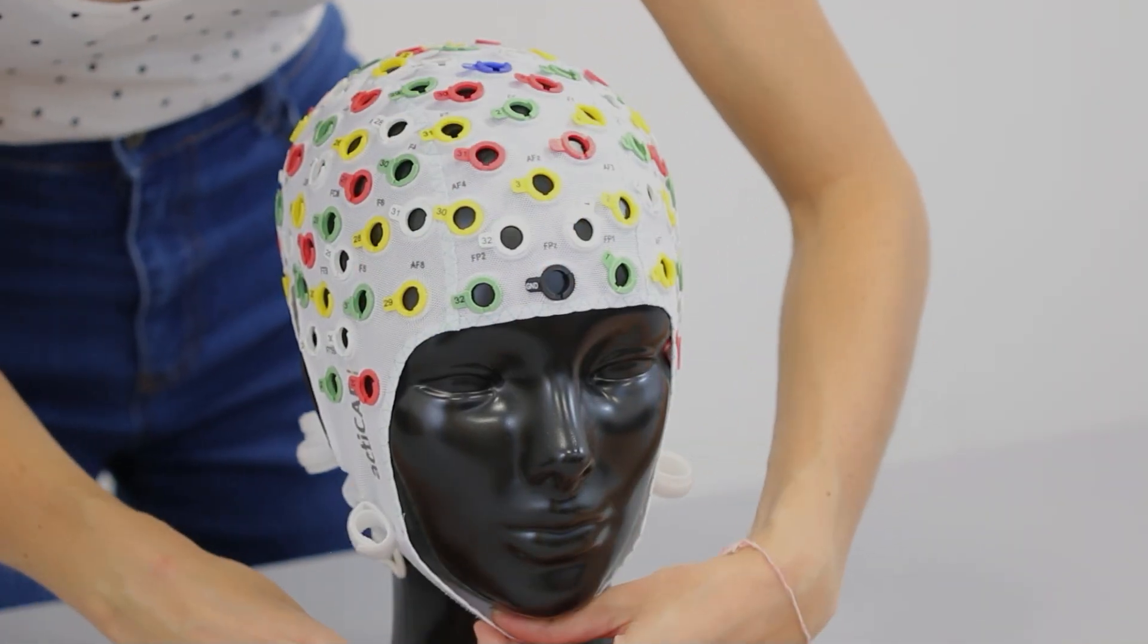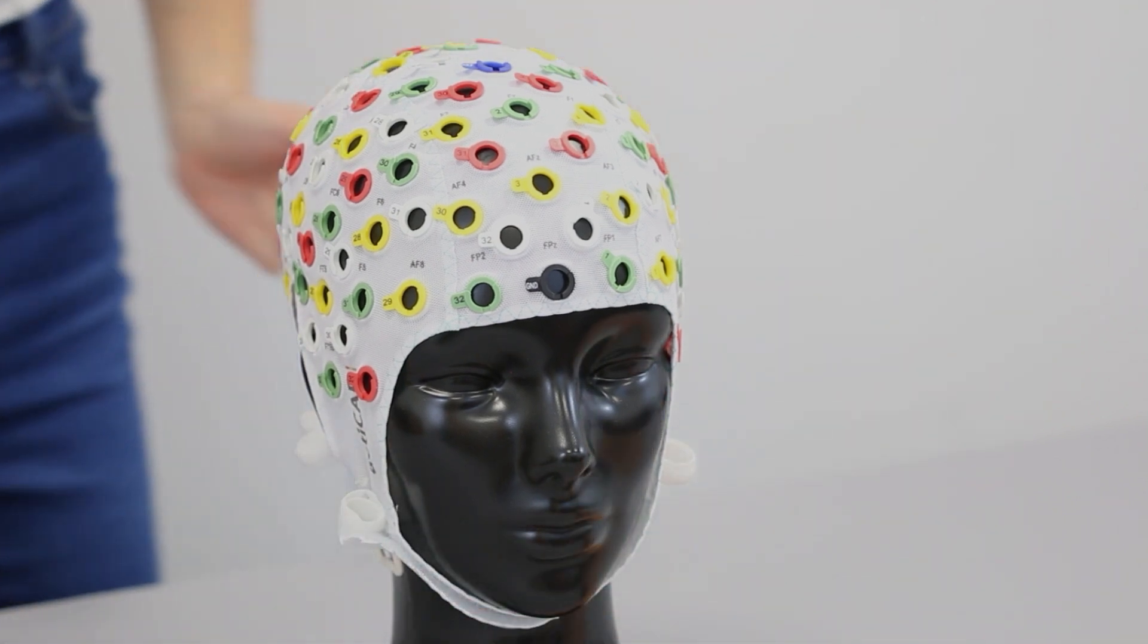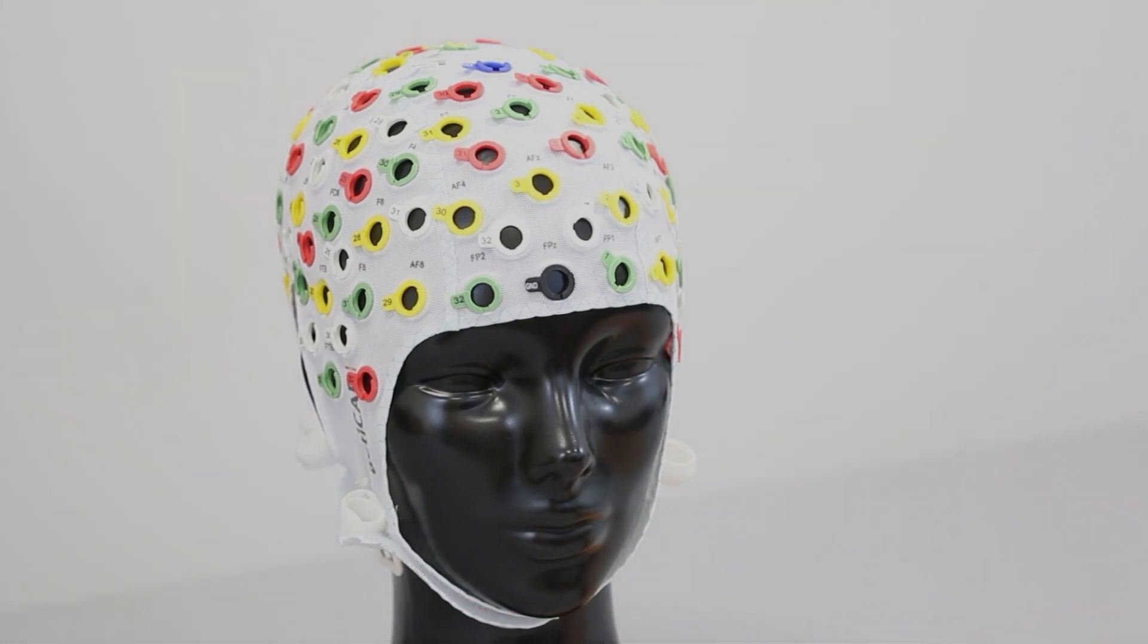With a model head, you can start to imagine your participants wearing the ActiCap snap cap and arrange the lead wires in the desired way.